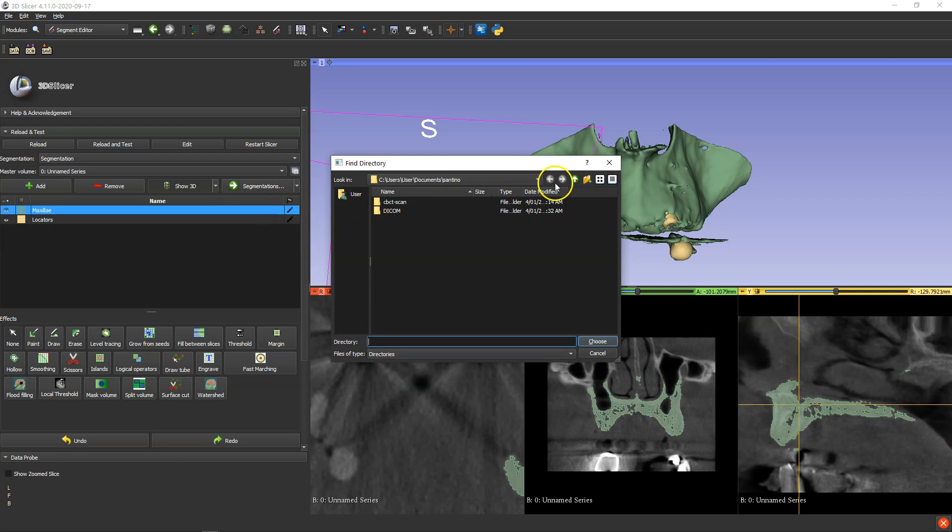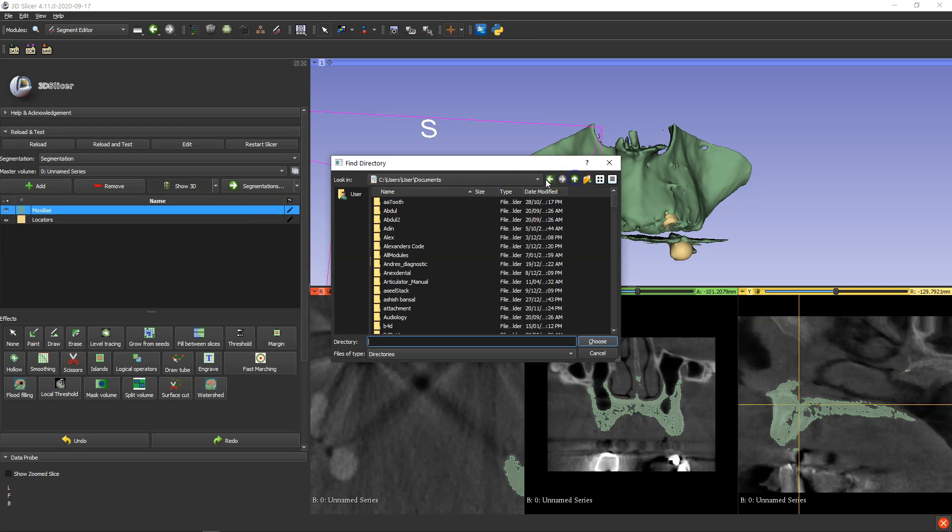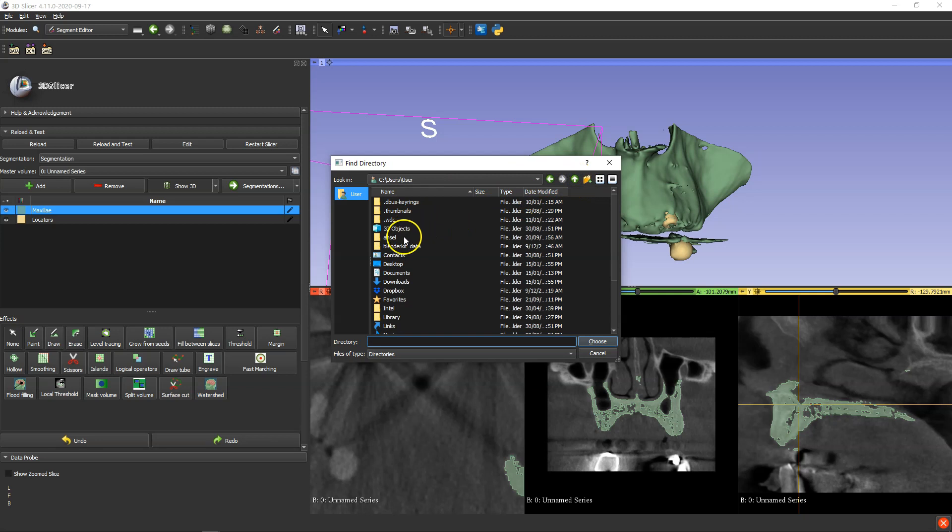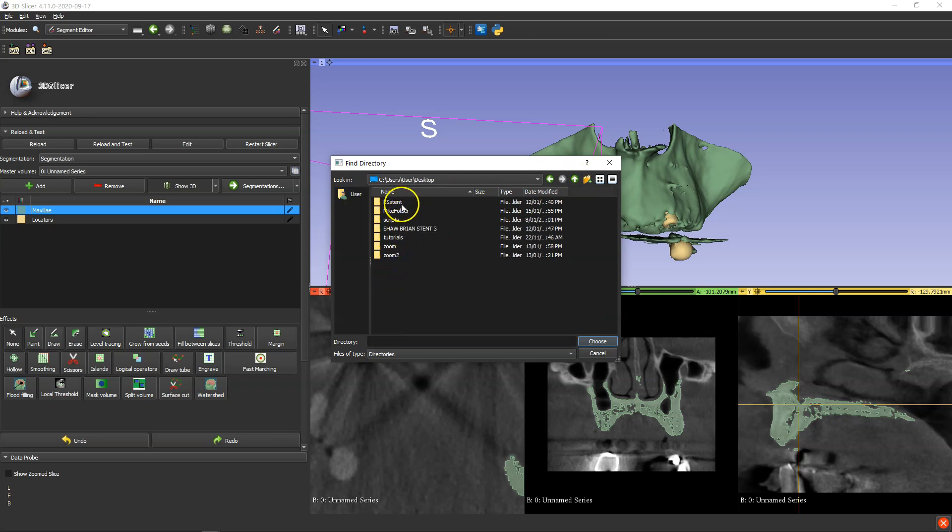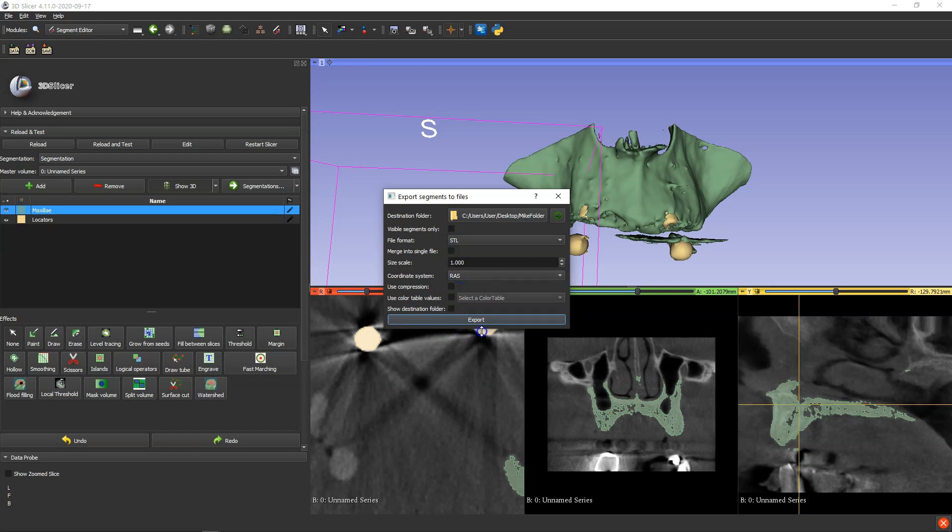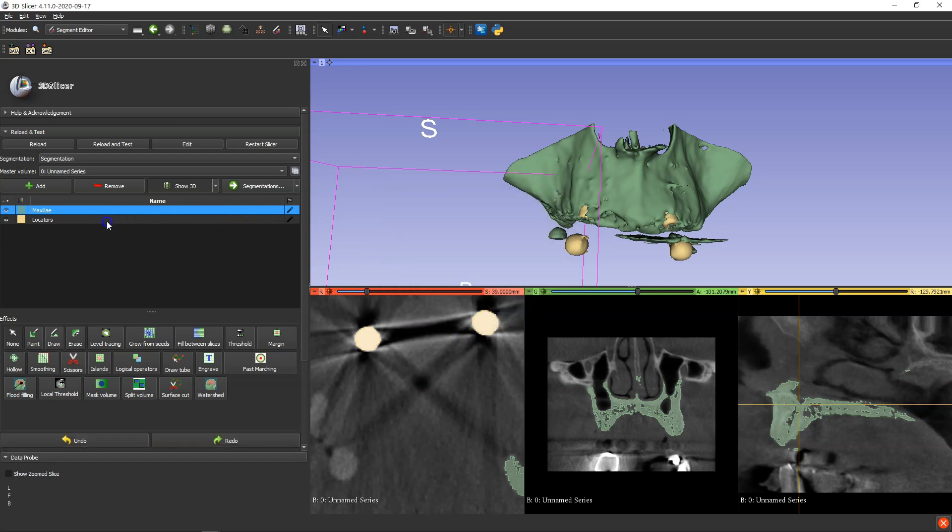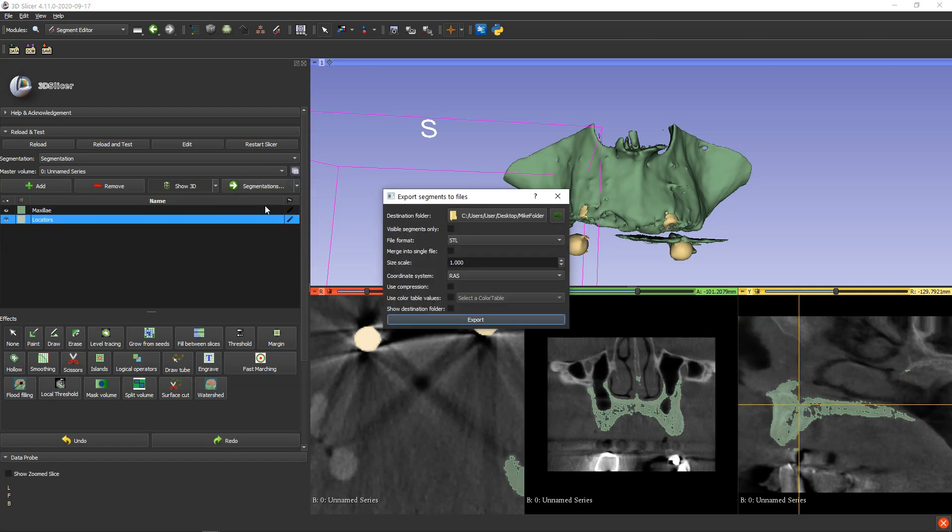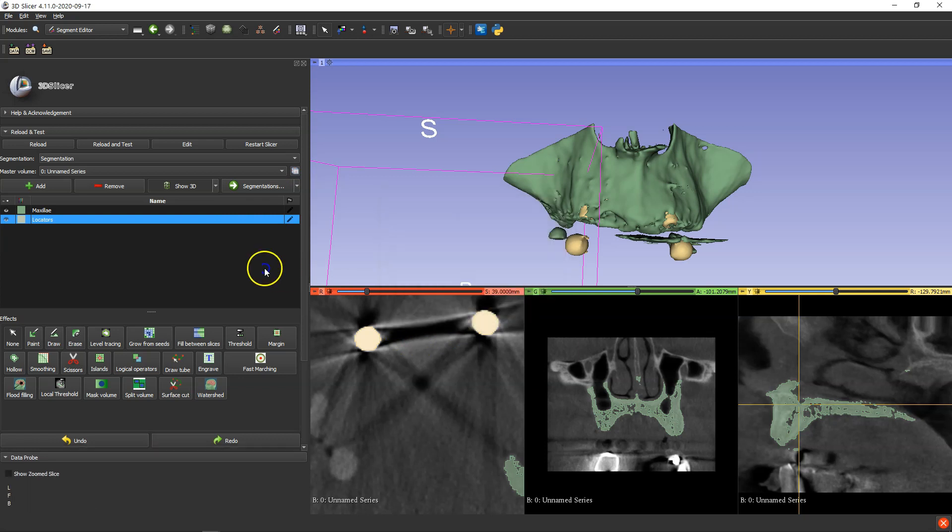Choose the folder where you want to save it in. And then based on that I've got it on my desktop. And then choose that folder and then make sure it's STL file. All of the other ones are unchecked. You have to make sure this is RAS. And then click on export, and then go to this one and do exactly the same thing. Export. And now it's time to open up Blender and import these objects.